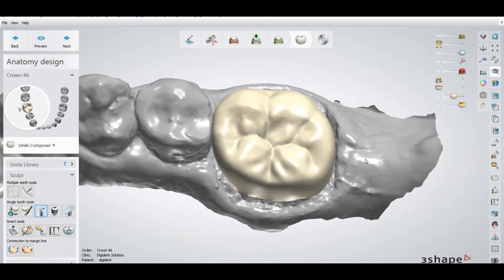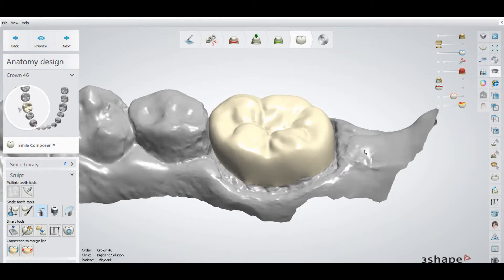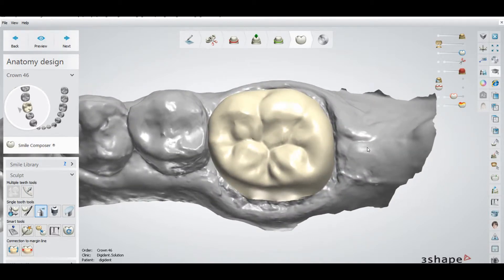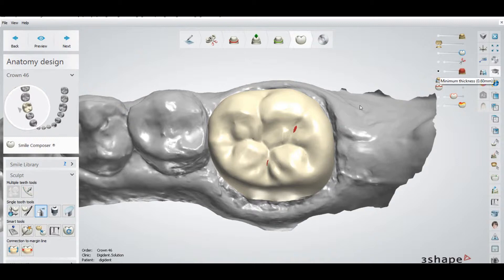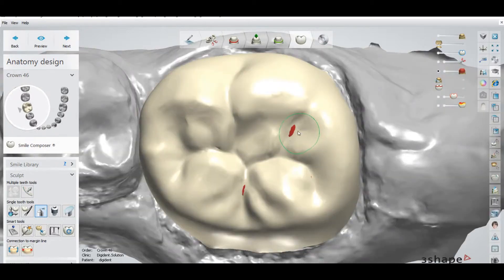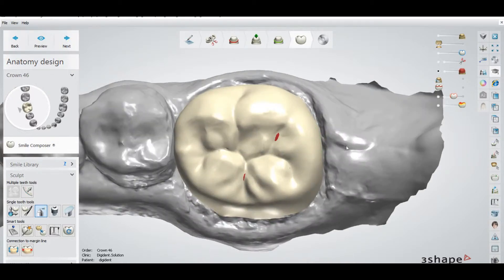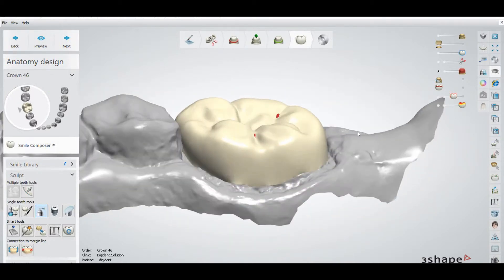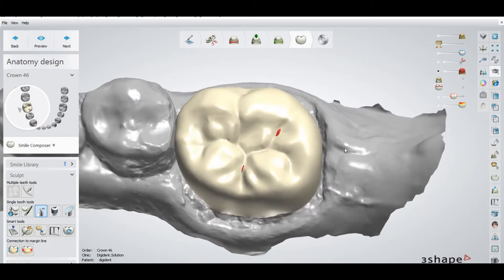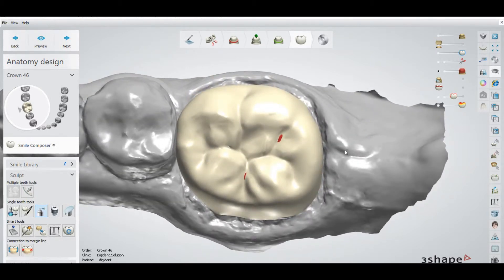So how you can check that your minimum thickness is okay or not. There is a first option on the right side — you will find a red die. That is the minimum thickness option. If you activate this option, you can see the red areas showing that your thickness is less than 0.6mm. This is the first option to check the minimum thickness.